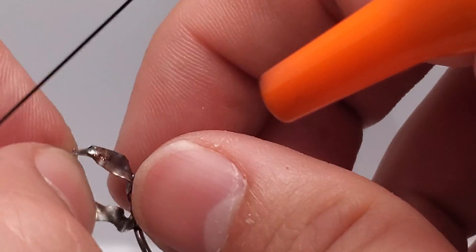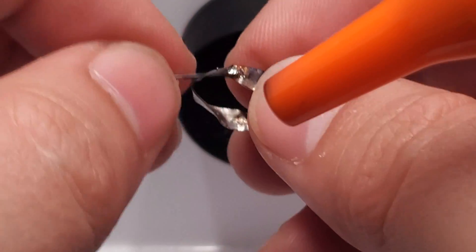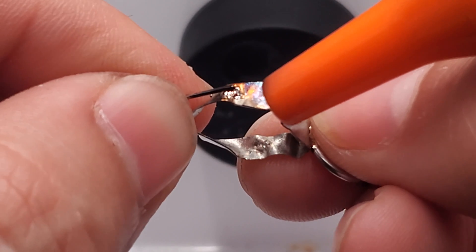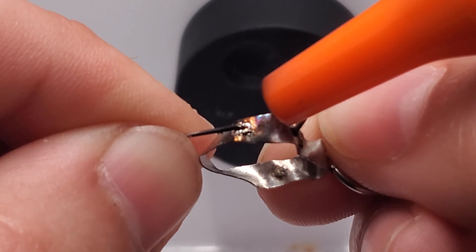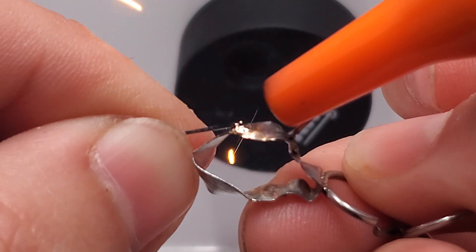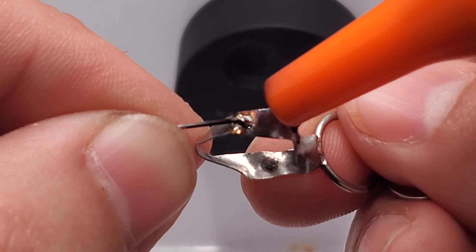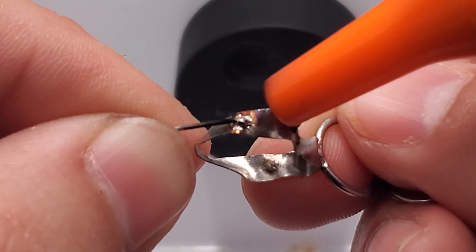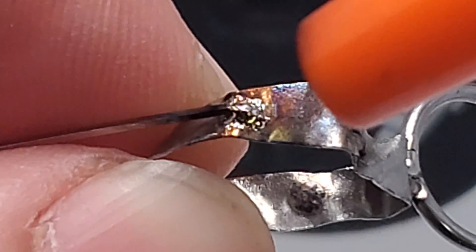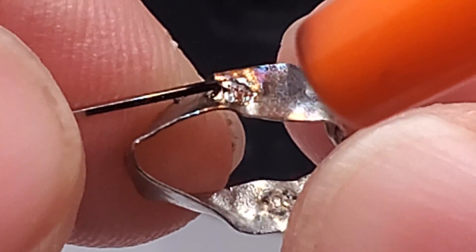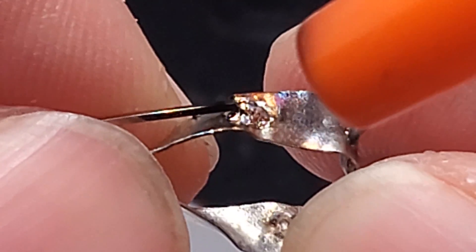Another technique I like to cover: let's say we finish all these welds and add this wire, for the sake of demonstration this is our molar band with that brace on it. That's essentially our finished product right there. If I can get a little closer, hopefully there's adequate detail. There's a bunch of tiny welds and it makes a nice texture on it.